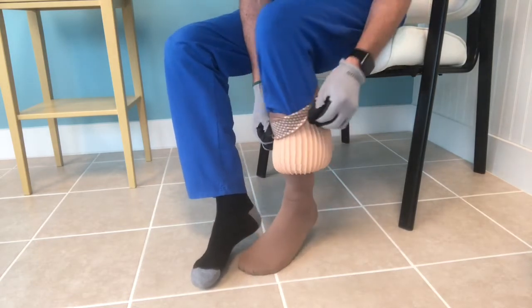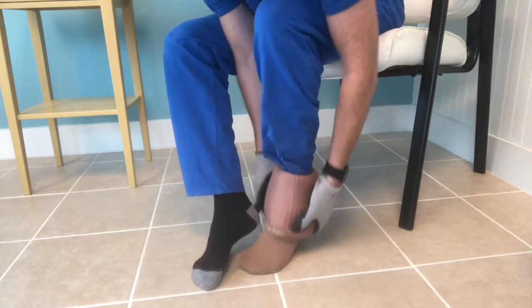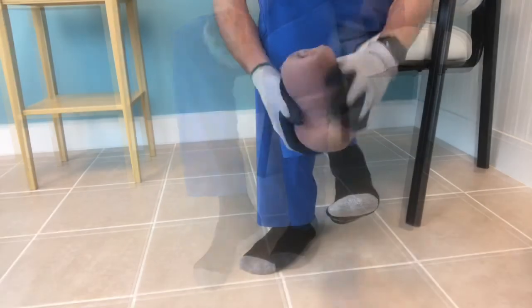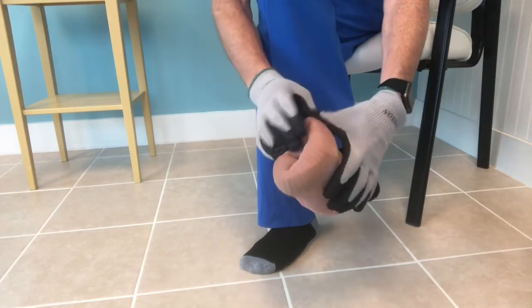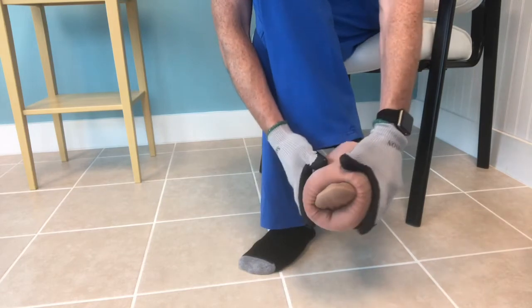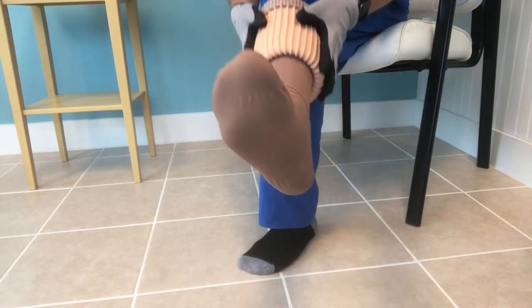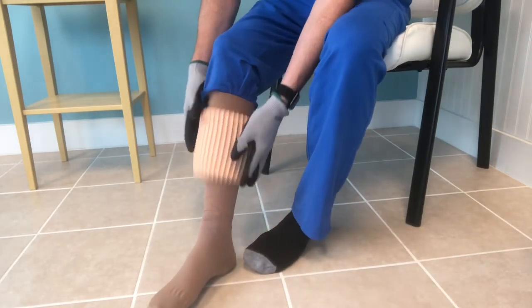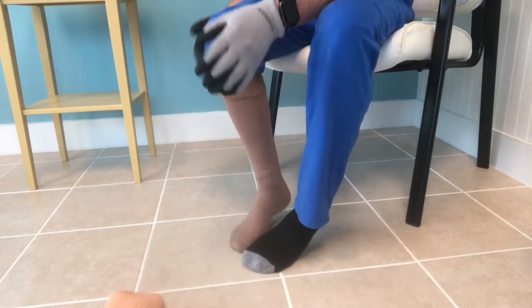In this example I have my leg on the floor, but each person will have to find their own way. My pants are getting a little bit tangled up there — it's actually easier without the pants on. I'm going to show another leg position: legs crossed. The benefit of that is your foot is not on the ground, so you don't have the floor to deal with as you come past the heel. But once you get up high enough you can put the foot back on the floor. That's one version of using it.